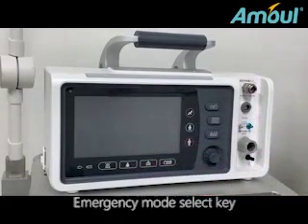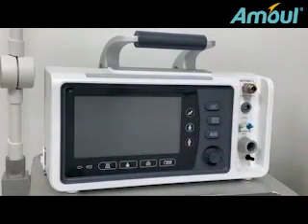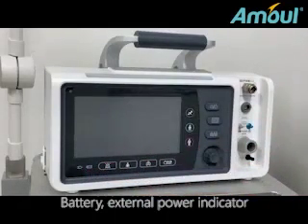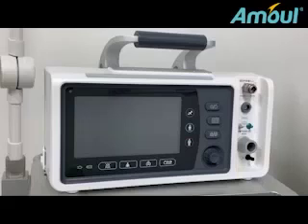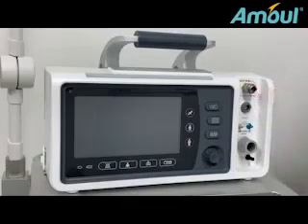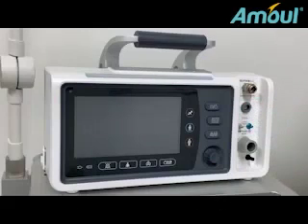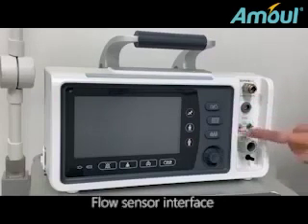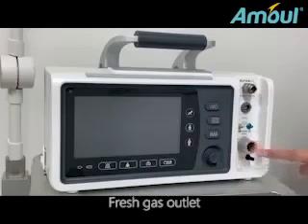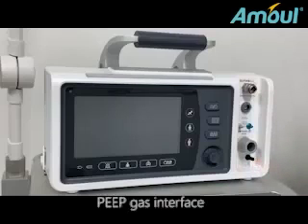Emergency mode select key. Mute key for voice alarm. Battery external power indicator. Air interface. ETCO2 sampling interface. Flow sensor interface. Fresh gas outlet. PEEP gas interface.